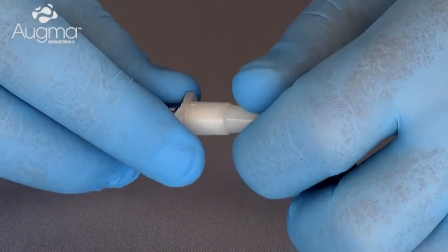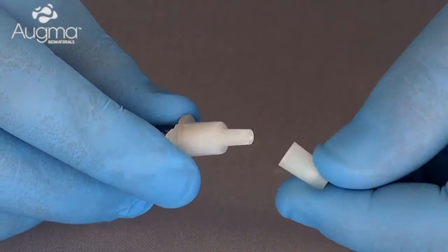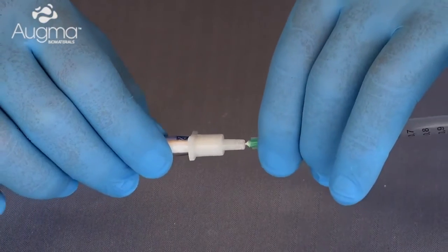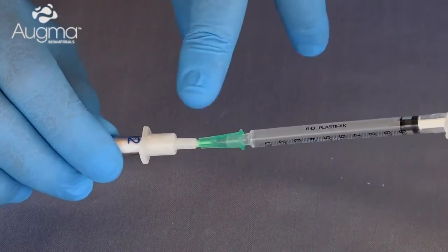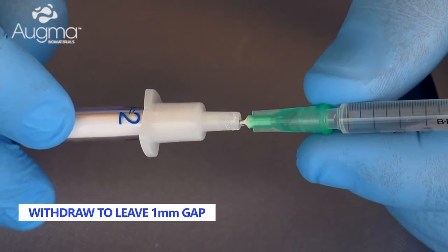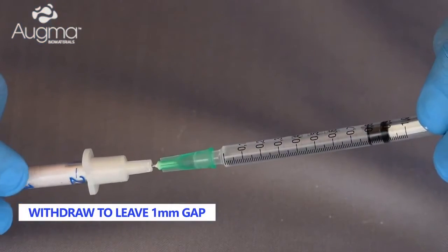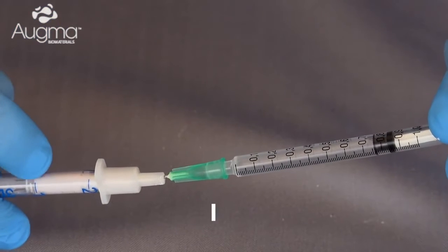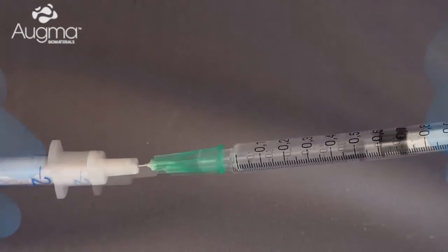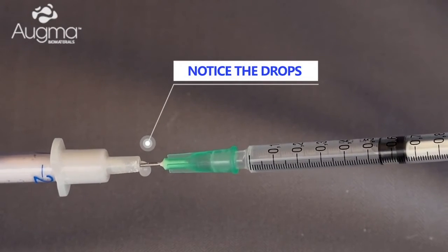We remove the small cap by twisting and pulling it off, then introduce the needle all the way down into the 3D-Bond powder located within the driver. Afterward, we draw the needle back about 1 mm to enable liquid surplus to expel out. At this stage, we start to inject the saline into the powder of the 3D-Bond until a few drops come out.